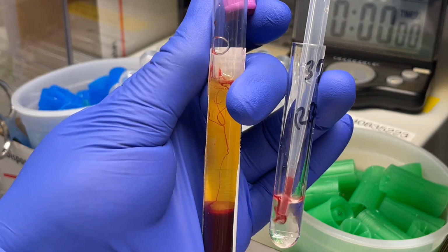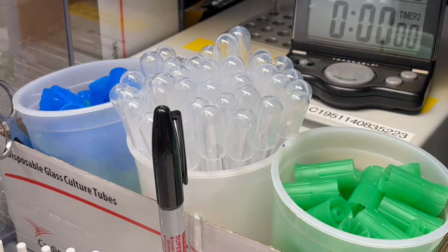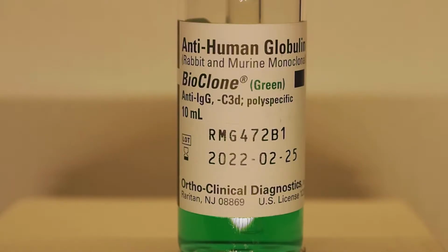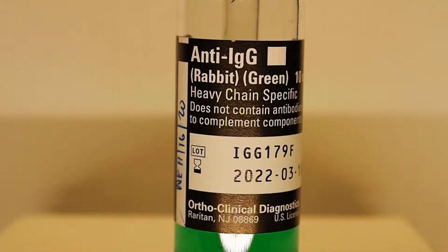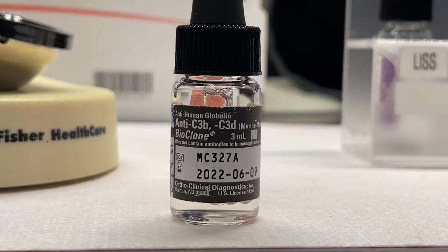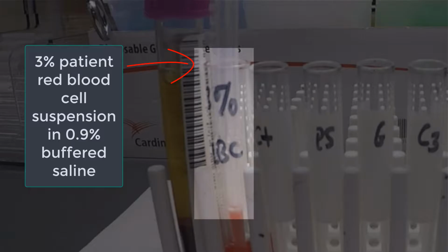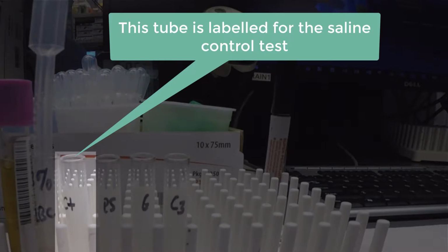Upwards of 4 different reagents are utilized for the DAT: buffered saline, polyspecific anti-human antiglobulin containing both IgG and complement, monospecific IgG antiglobulin, and monospecific complement antiglobulin. To begin, 4 tubes are labeled with the patient's initials and an abbreviated notation for each of the 4 reagents mentioned in the introduction, with the tube labeled CT acting as a control.